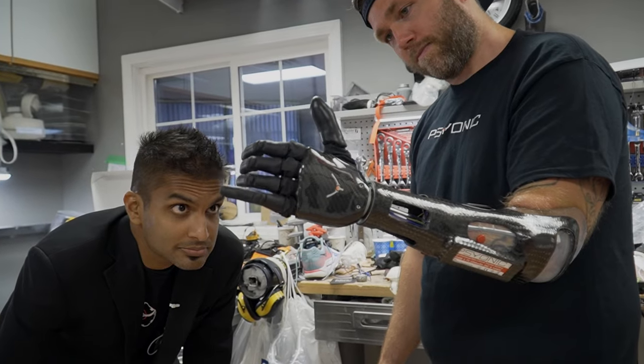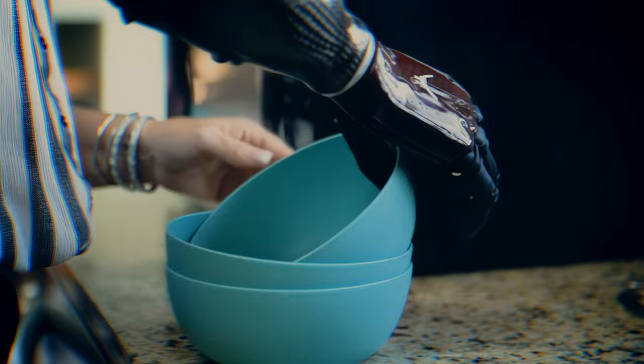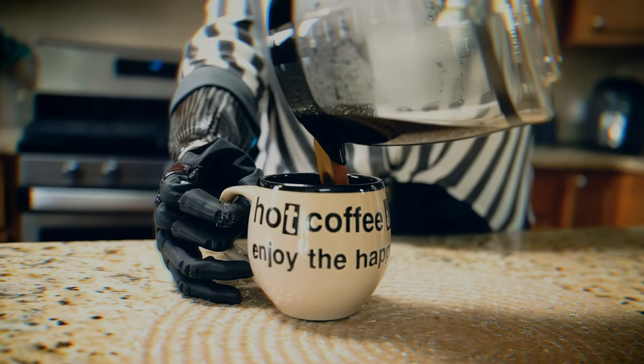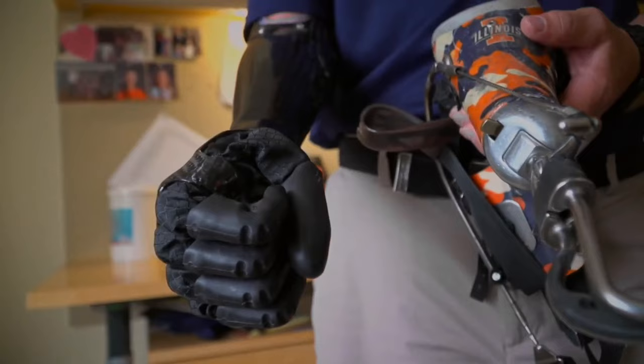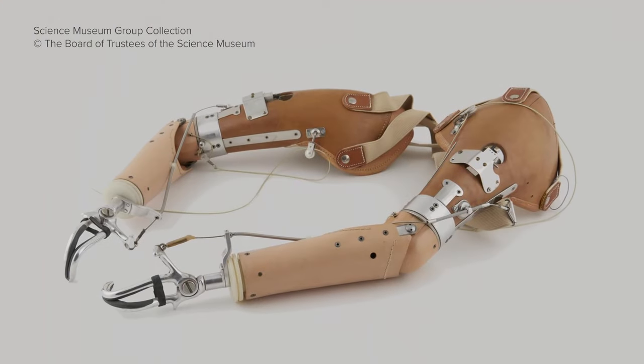Our patients, what they're looking to do is just do their normal activities of daily living, right? So just feeding themselves, tying their shoelaces, going to the gym and working out. A lot of the devices that are out there, you couldn't even do some of those simple tasks.